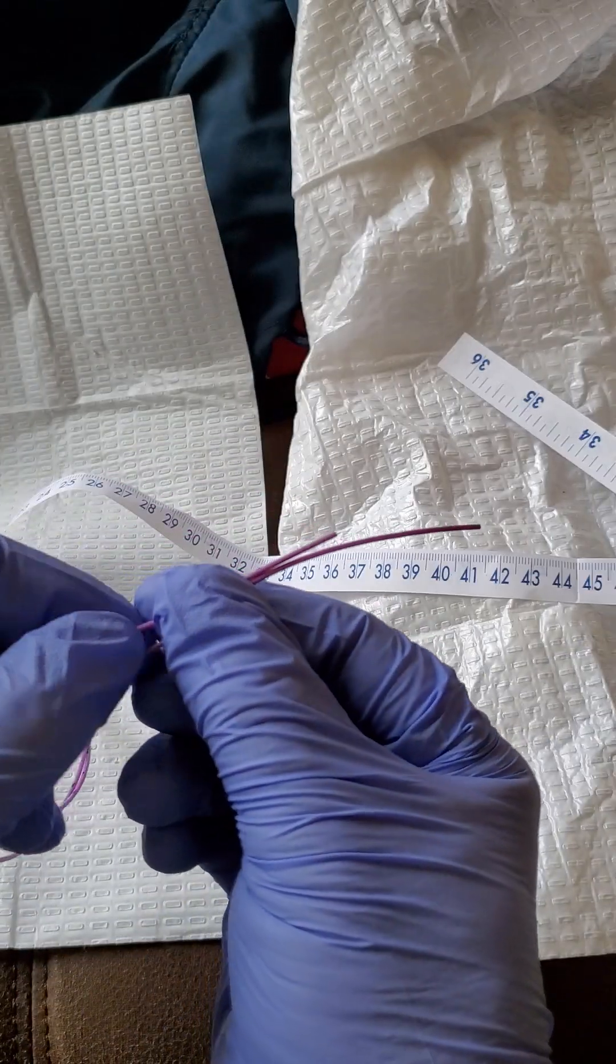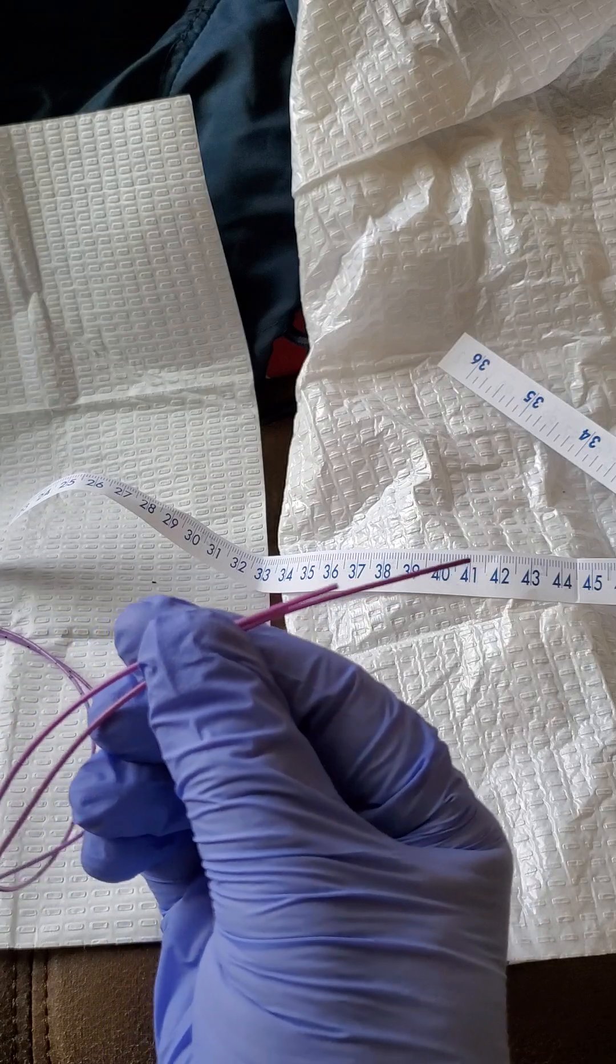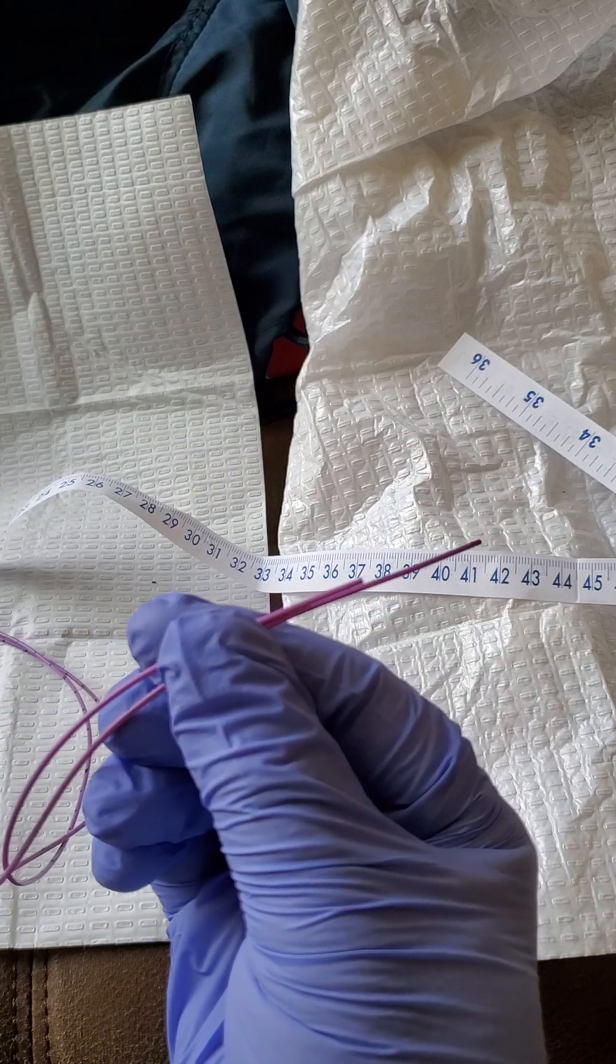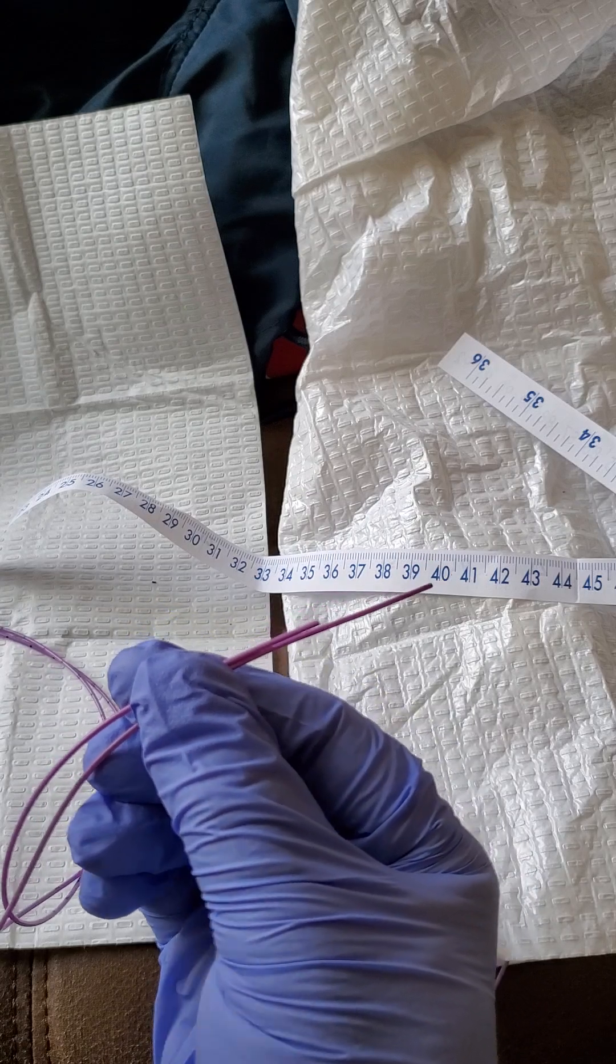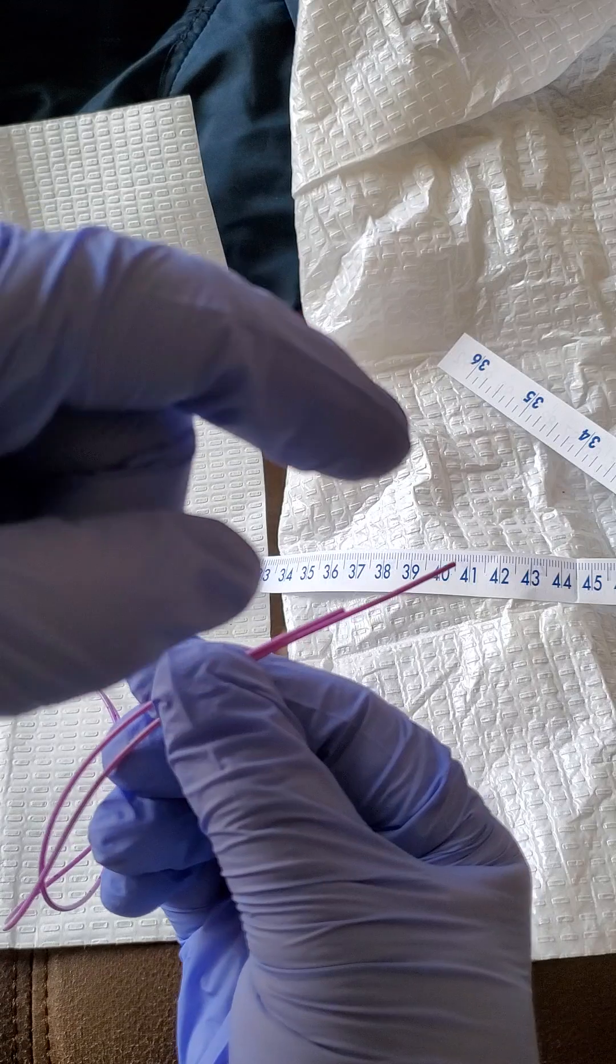and were the same length during implantation. The nurse or doctor who implanted it cut the tip at this spot where it sits in the superior vena cava.